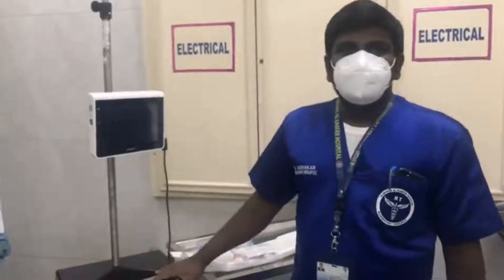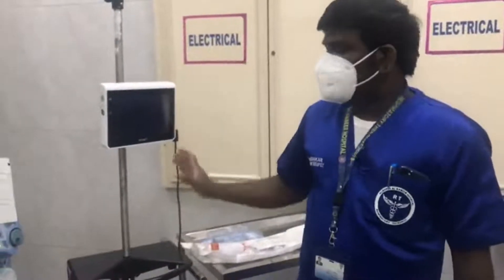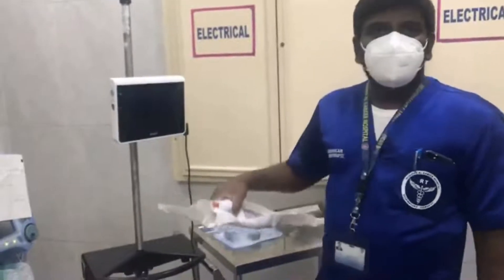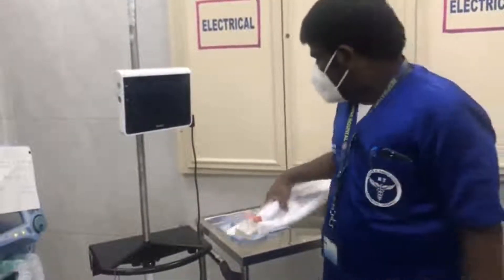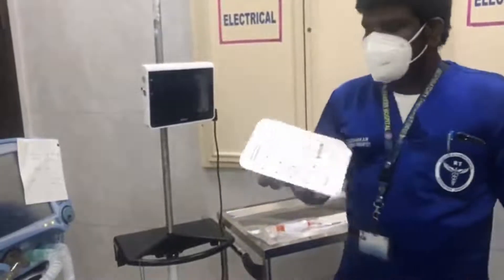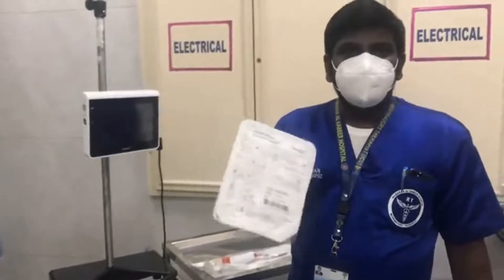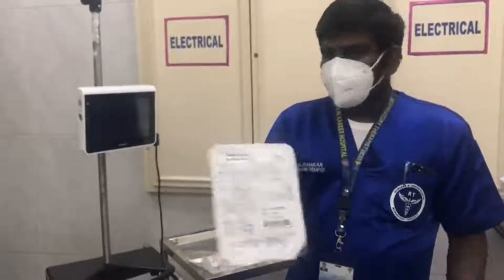Today we are going to see about the AMBU disposable bronchoscope monitors and how to connect the disposable bronchoscopes, how to use them. There is a broncho sampler kit also, and how to take the bronchoalveolar lavage sample to send for cultures. This is the broncho sampler kit.